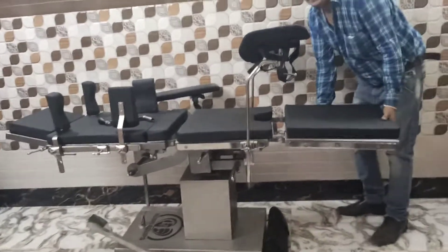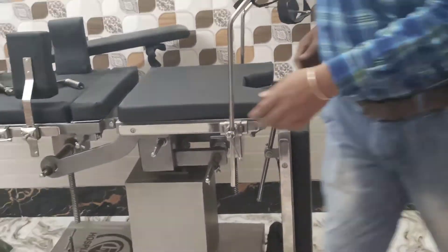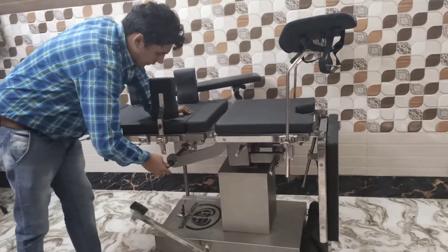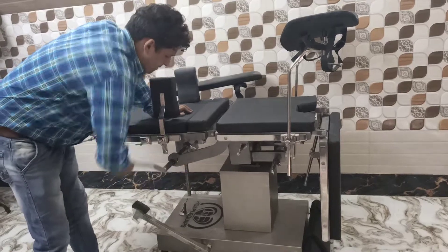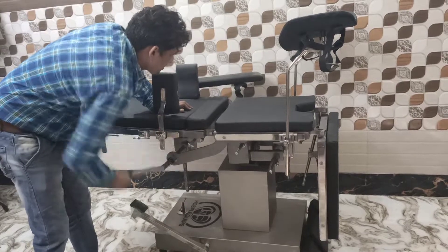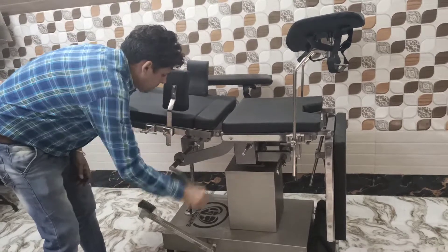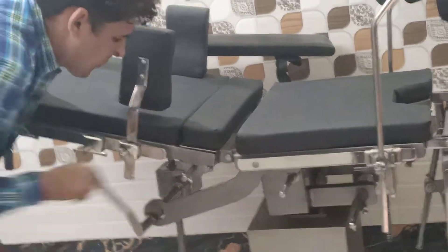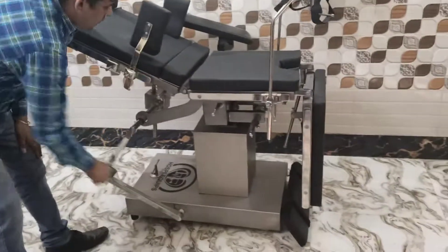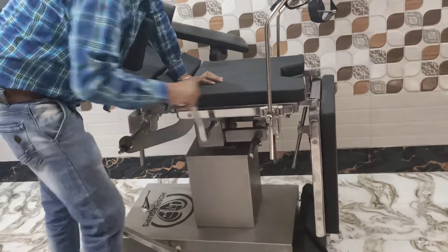This is working — you can see it operating there. All controlled by manual doing there. Four chair positions done by this. This is for the tilting position.